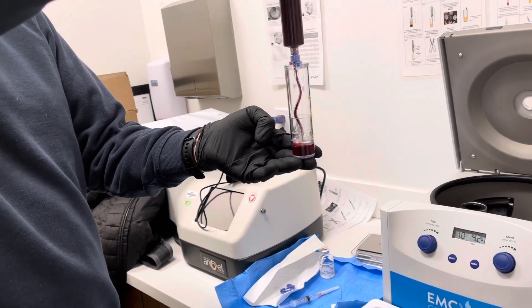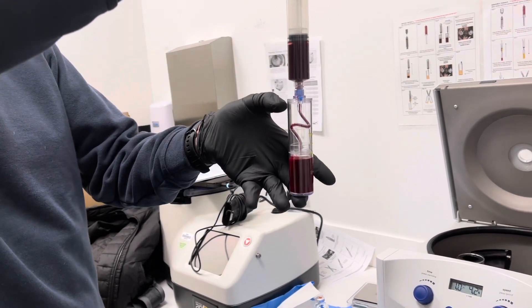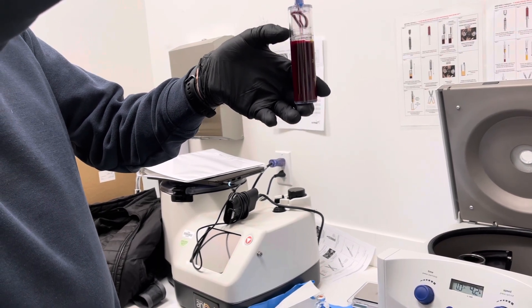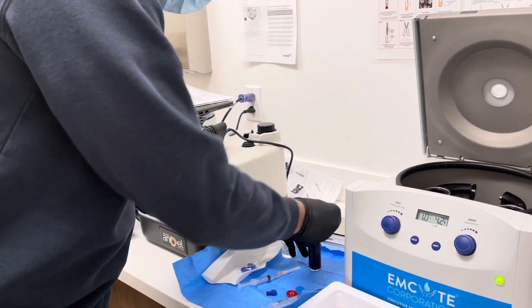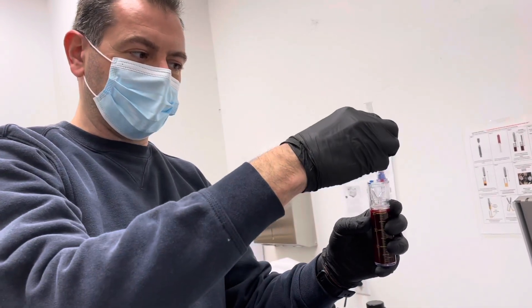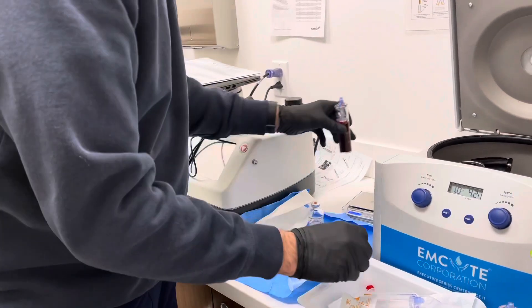You want to keep your eye on that plastic piece. I took too much blood, but that was deliberate — I wanted to make sure we had enough. Keep your eye on it so it doesn't get too close to the top, because we still want to seal the blood that's in the tube. It's probably about 30cc. I'm leaving a little bit of space because I want to flush that tubing through, because no matter what happens in the centrifuge, we still have to come back through that blood to get the sample out — to keep the neutrophils and the nasty stuff out. Give it a little clean and then we're going to weigh it.